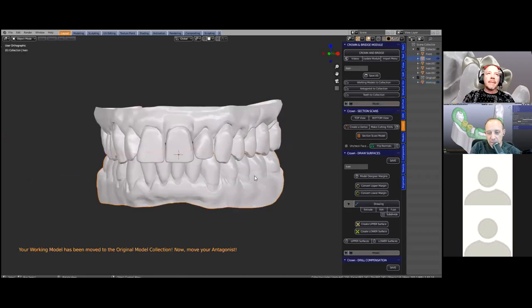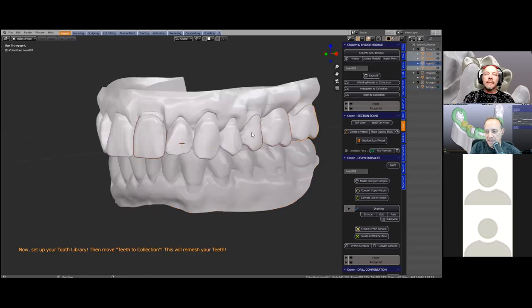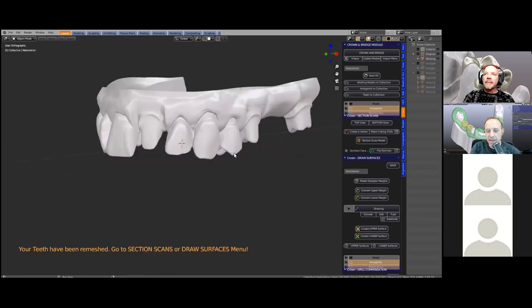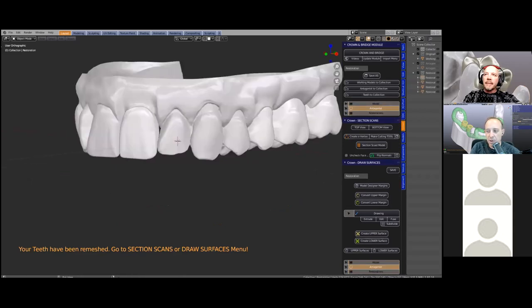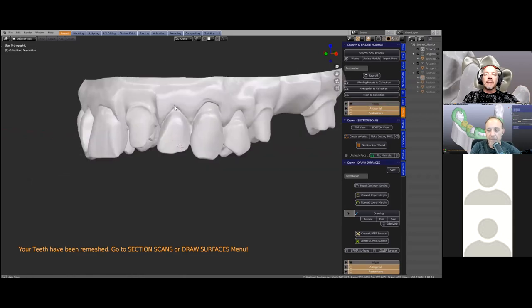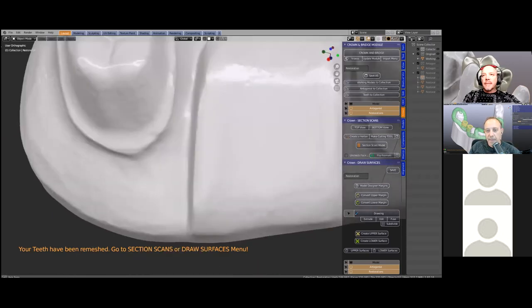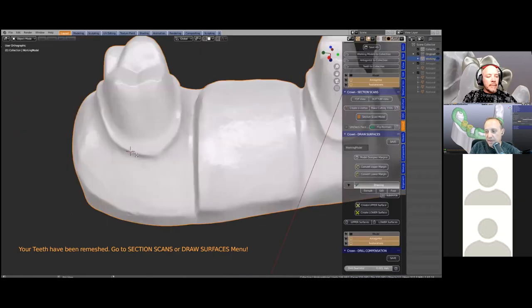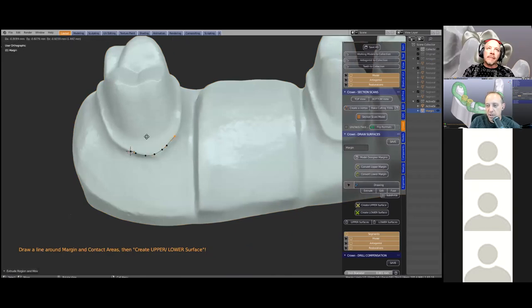The first thing we always do is put the scans into the center of the workspace, so Blender knows where up and down is. Putting the scans into a collection means Blender knows what is what — it knows what the antagonist is and so on. We're just dividing whatever's in the Blender scene into these collections, or layers. In Photoshop you call them layers; in Blender you just call them collections.